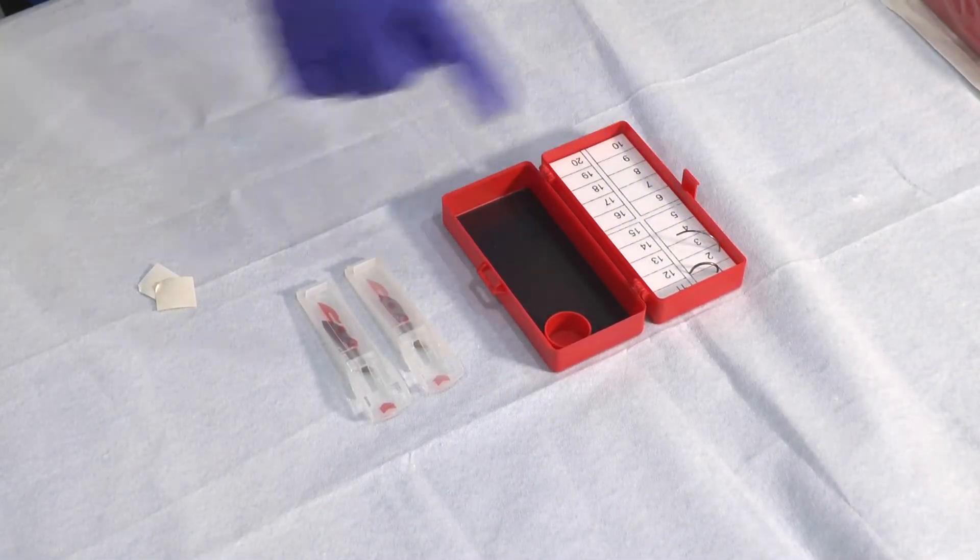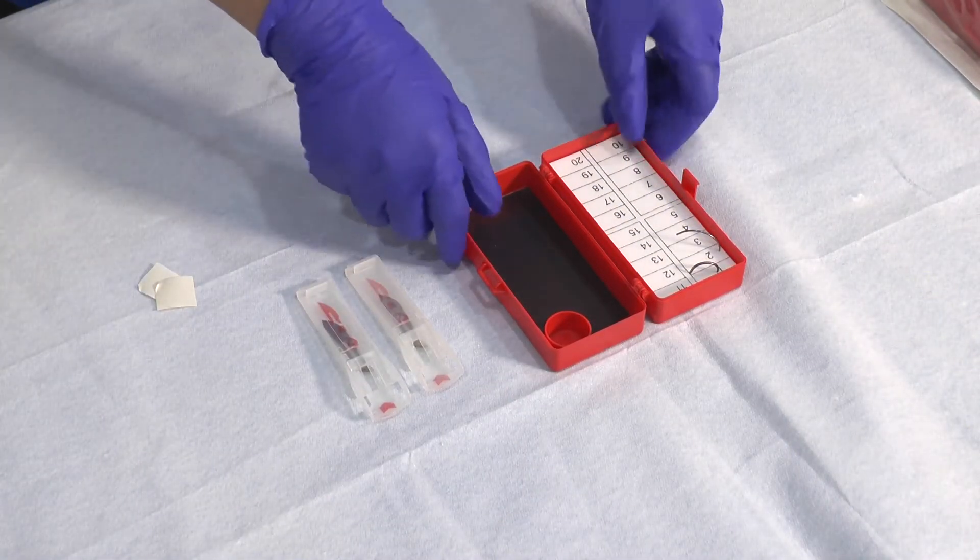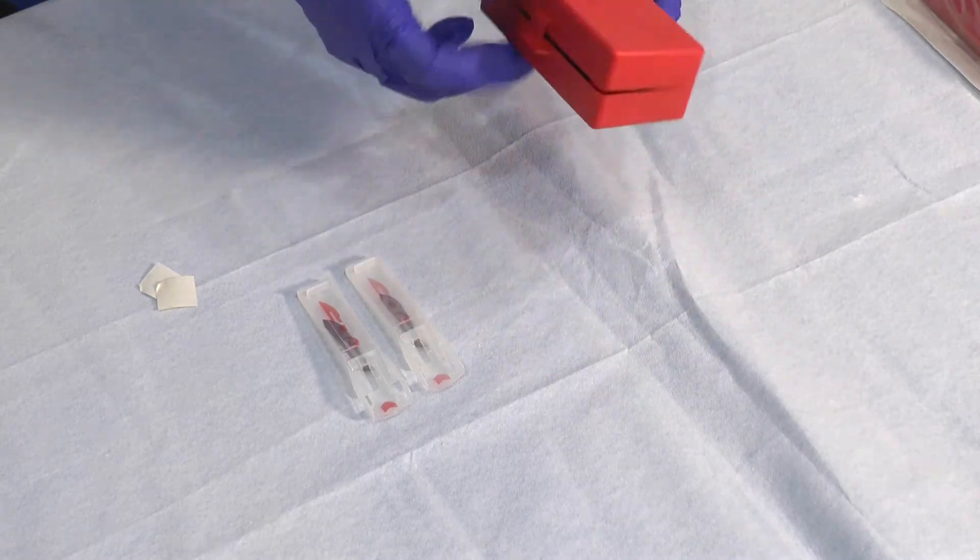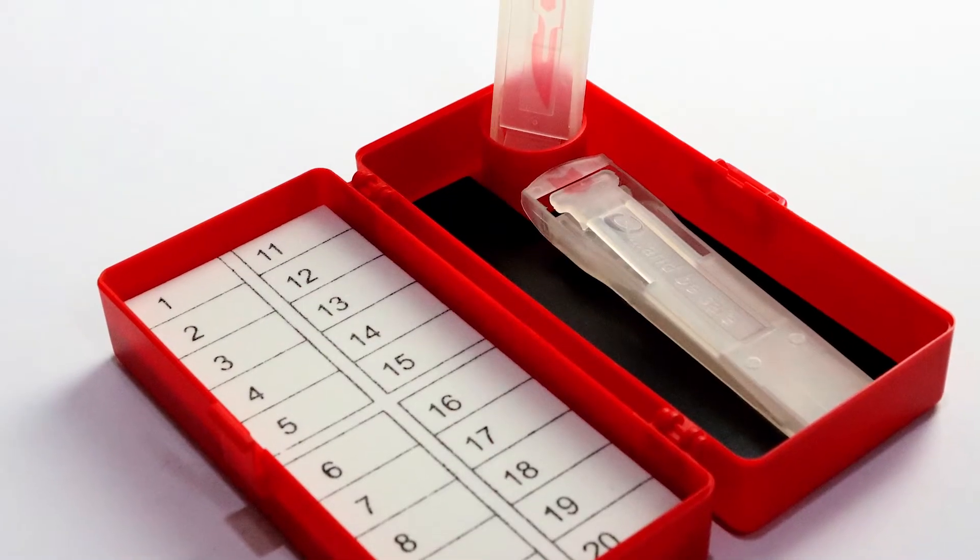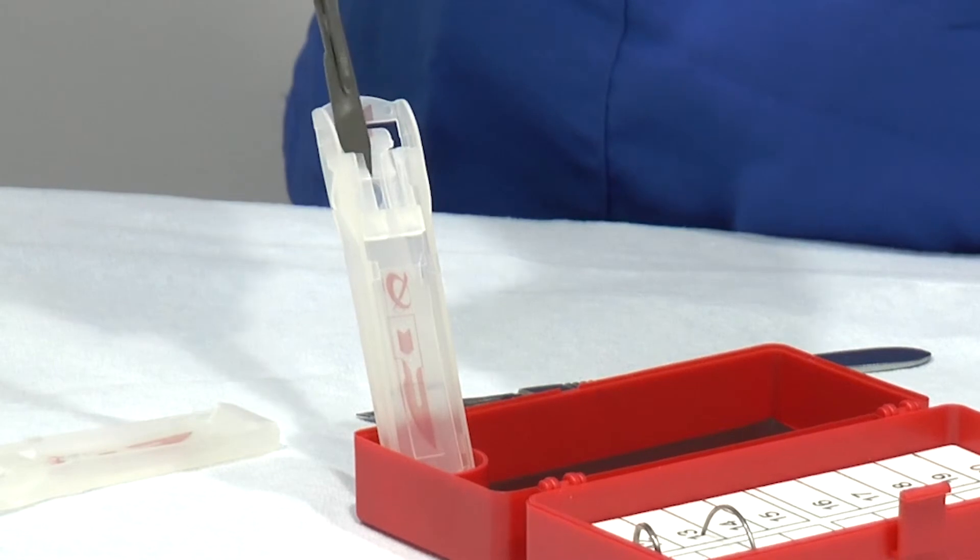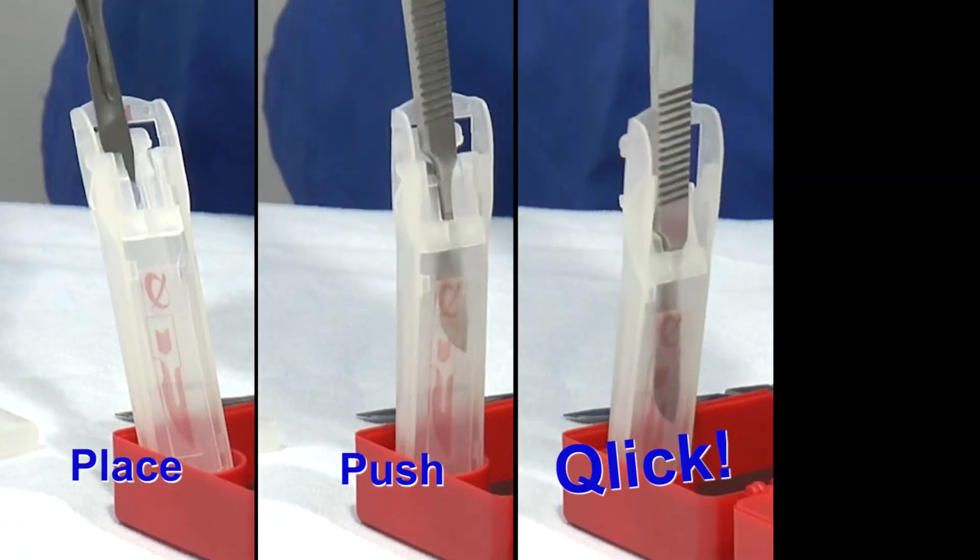After the count has been conducted, dispose of the used needle counter and cartridges separately into a sharps bin. With the ClickSmart blade needle system, OR sharp safety is as simple as place, push, click, and pull.